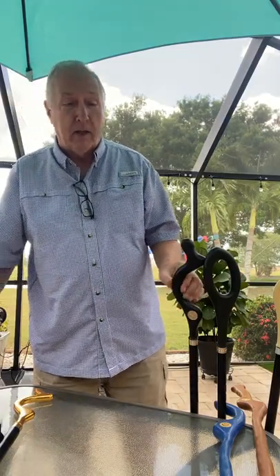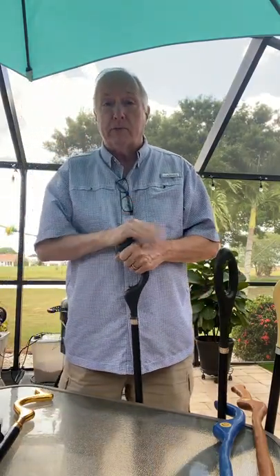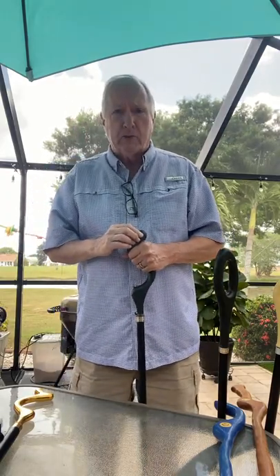About 35 years ago, I started working on the posture cane — some very basic ones. The top on this was designed originally for a Parkinson's patient who was a power walker.